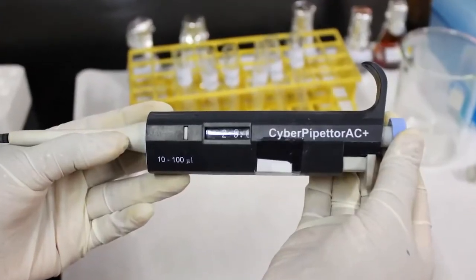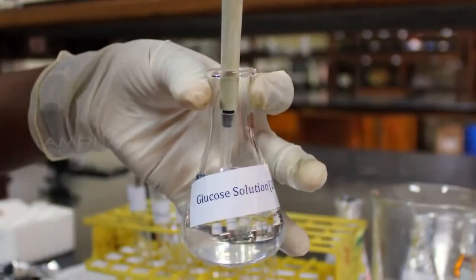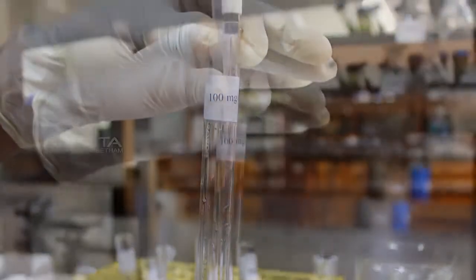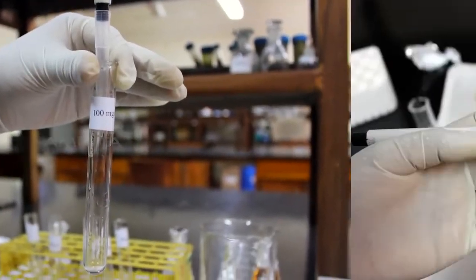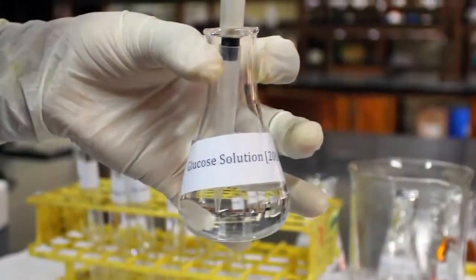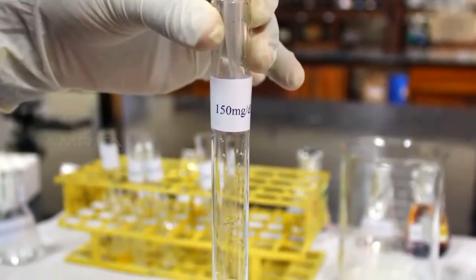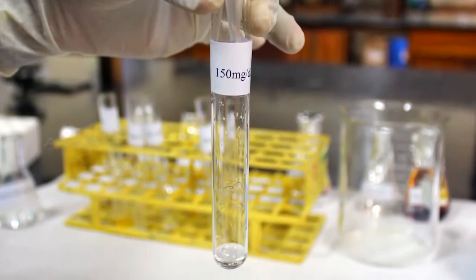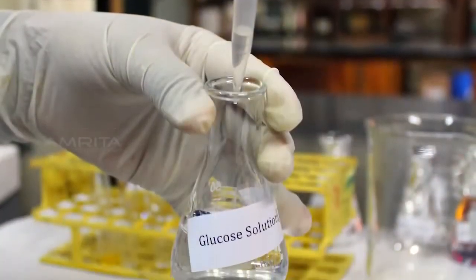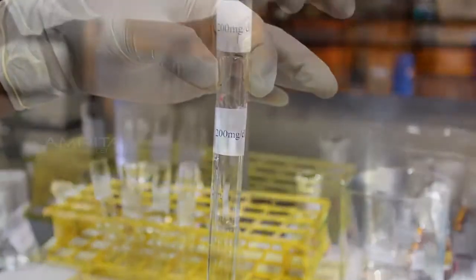Similarly, transfer 250 µL of glucose standard to the second test tube labelled as 100 mg per deciliter, 375 µL of glucose standard solution to the third test tube labelled as 150 mg per deciliter, and 500 µL of glucose standard solution to the fourth test tube labelled as 200 mg per deciliter.